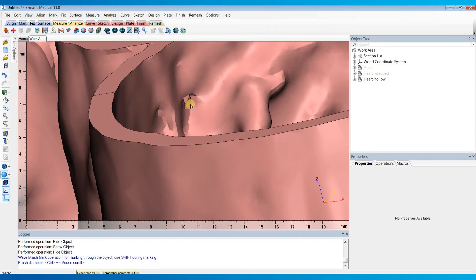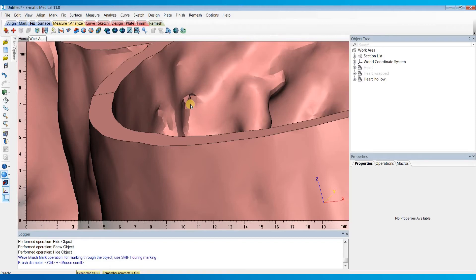In this video, I'll show you how to fix these holes in a quick and easy way using 3MATIC, which is part of the MIMIC's innovation suite. But first, let's talk about what the root causes of these holes are, and there's really two different causes for these holes or connections.